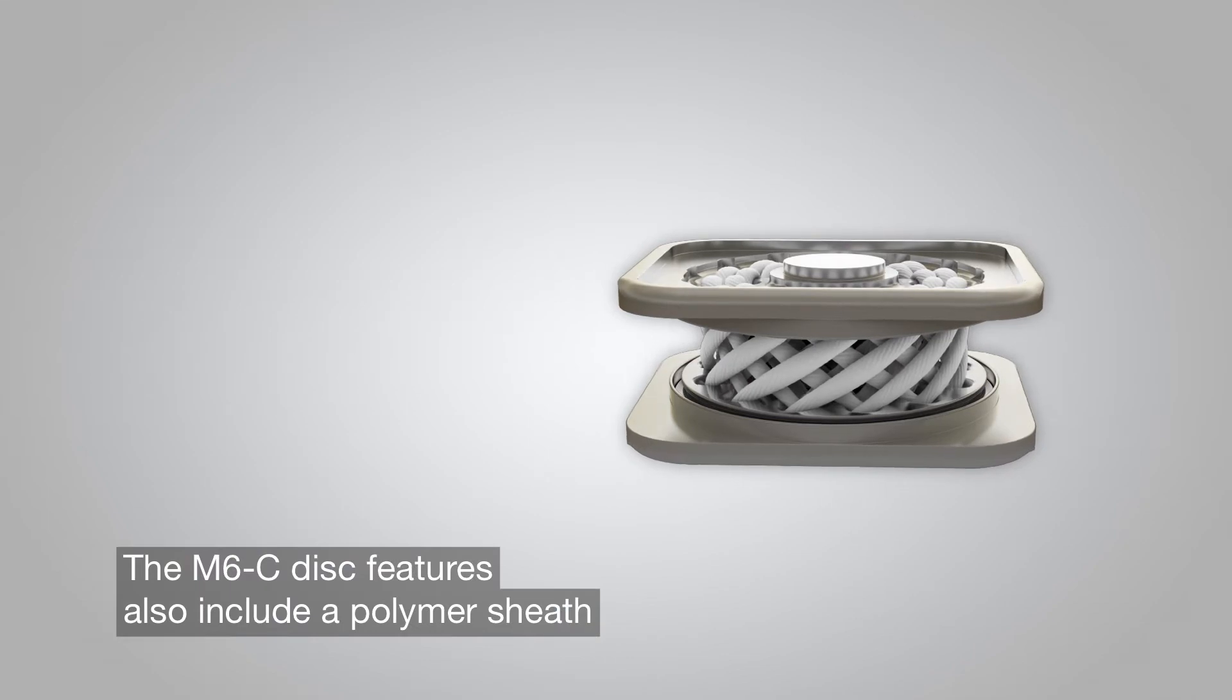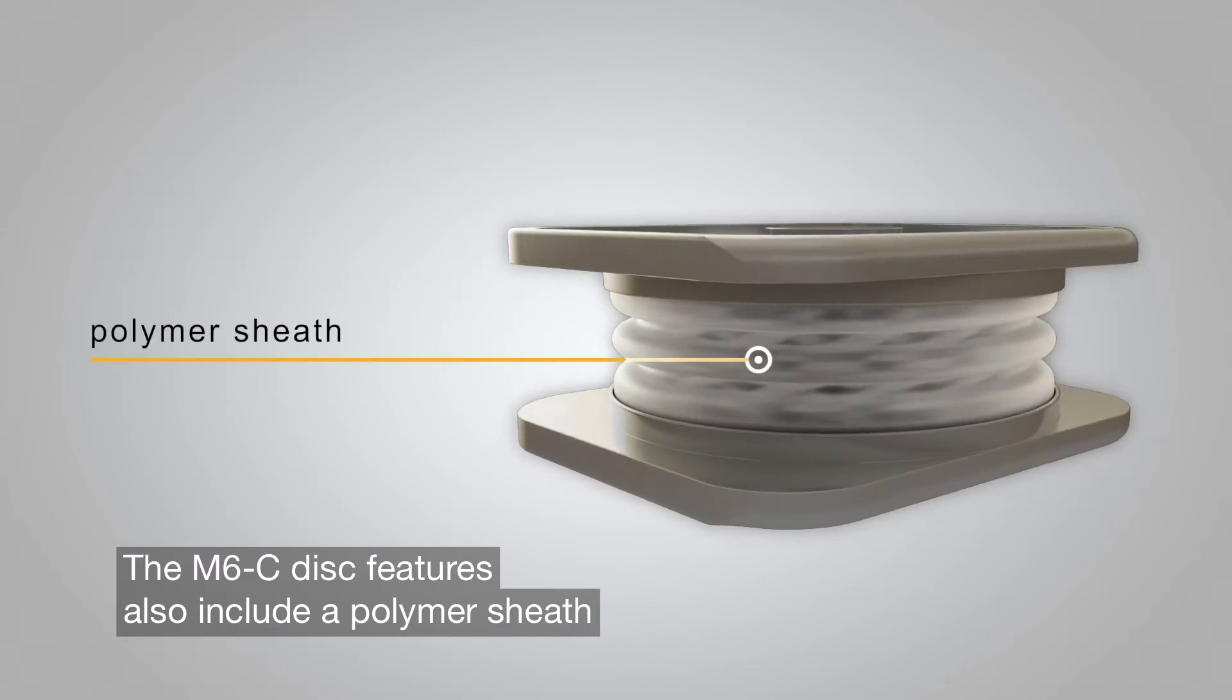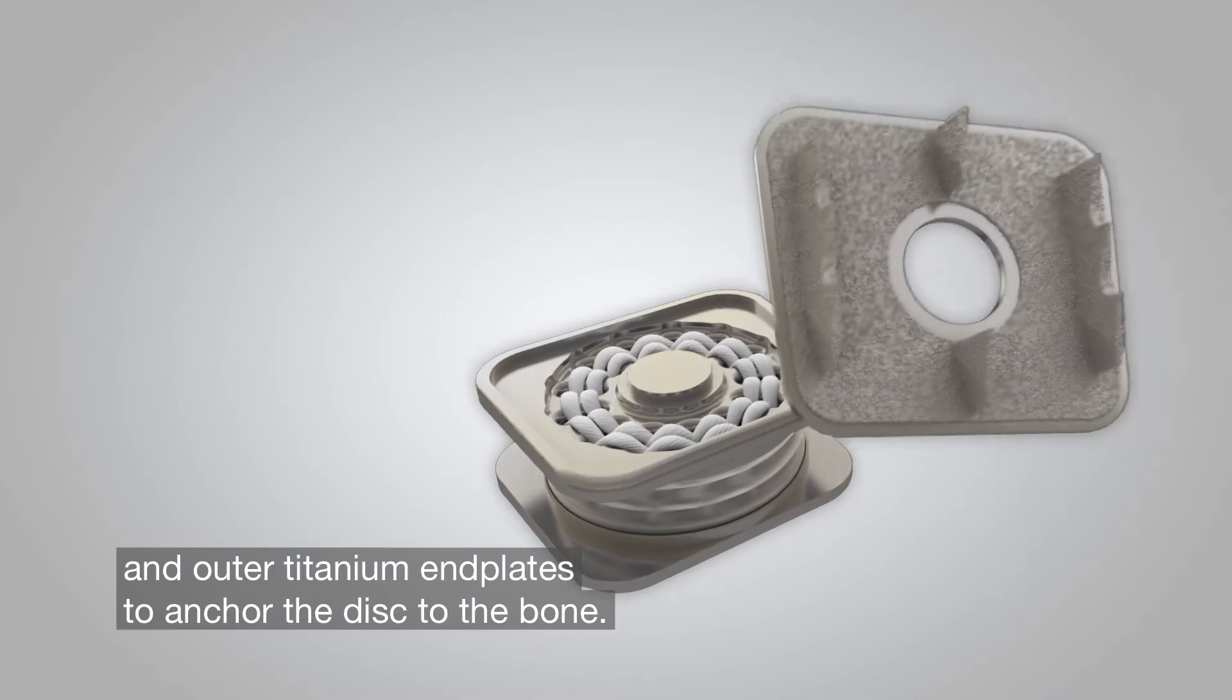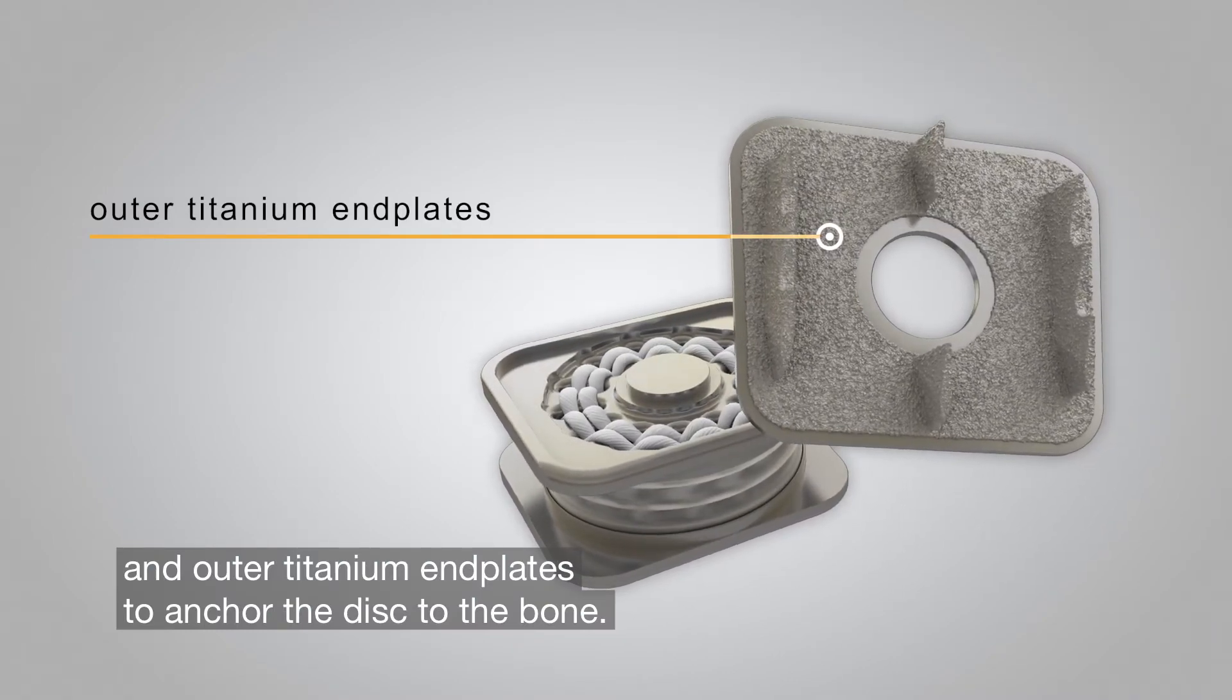The M6C disc features also include a polymer sheath and outer titanium endplates to anchor the disc to the bone.